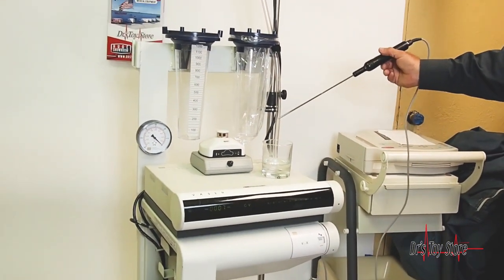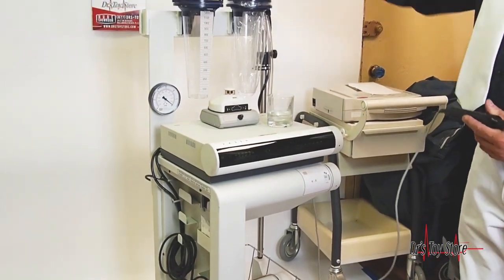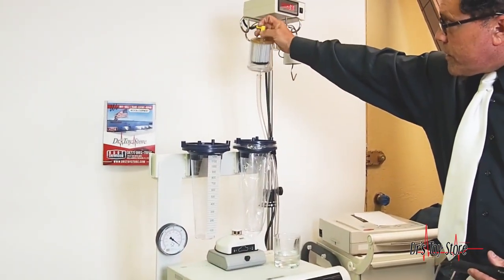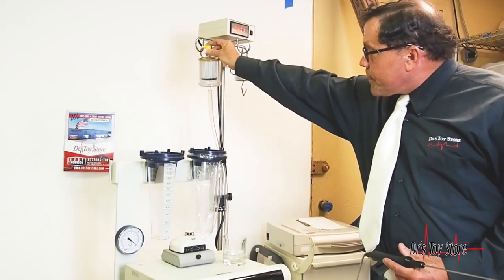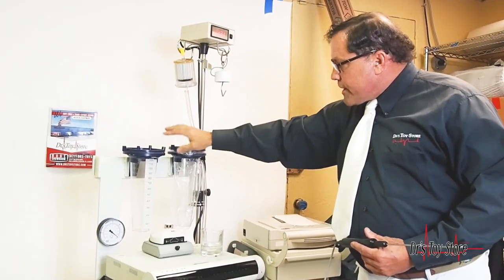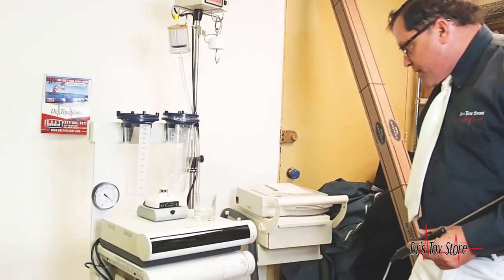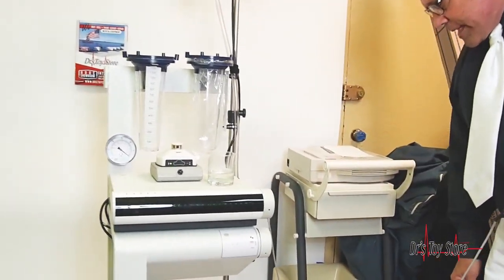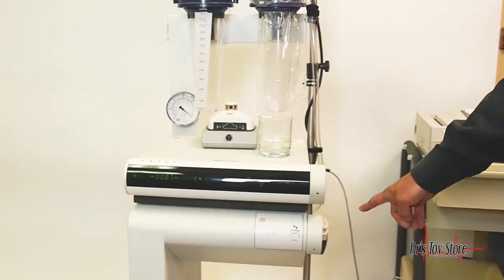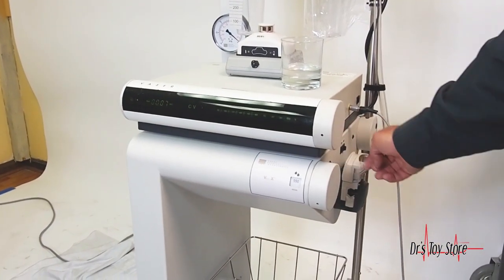These are options — you don't have to get it with wireless. But then you have your suction, right here. It comes with canisters. This is your wireless control. Then you have your infiltrator over here on this side, and this will infiltrate the fluid. You have forward and reverse.